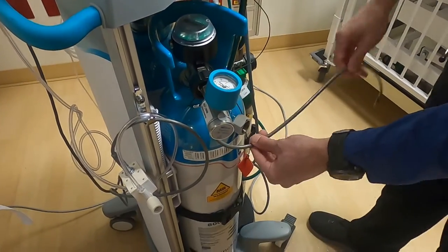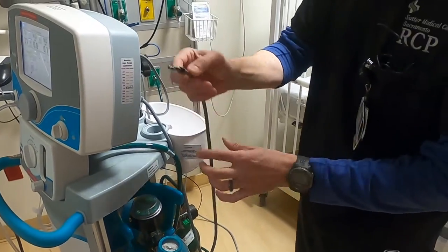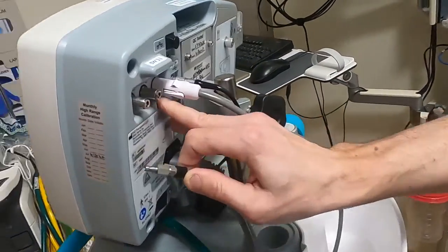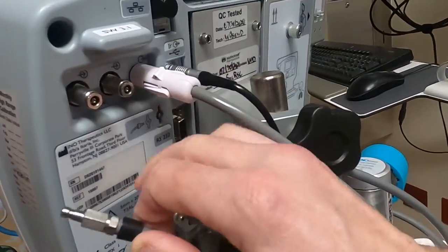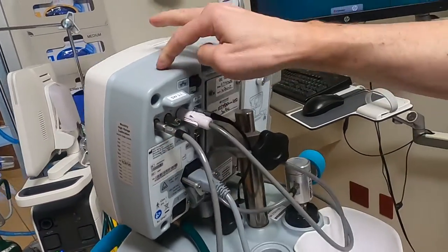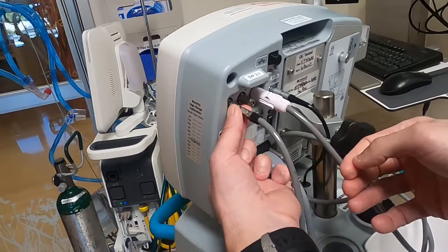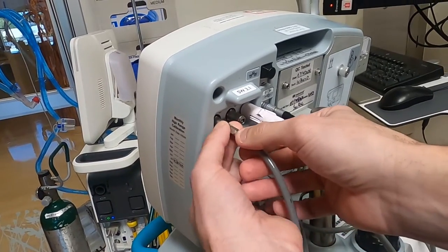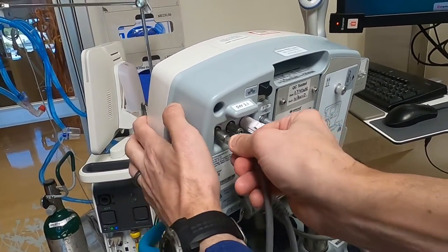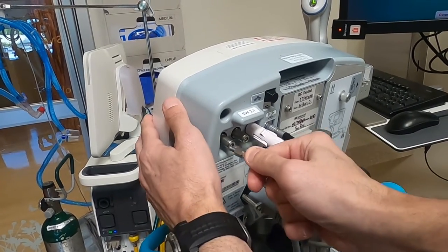The injector line goes into one of these two ports — it doesn't matter which one. It just slips in. When you're disconnecting it, push forward and pull out. Let me do that one more time: push forward and pull it out.